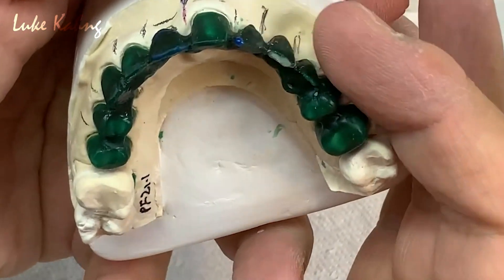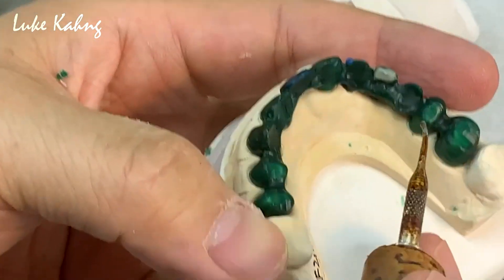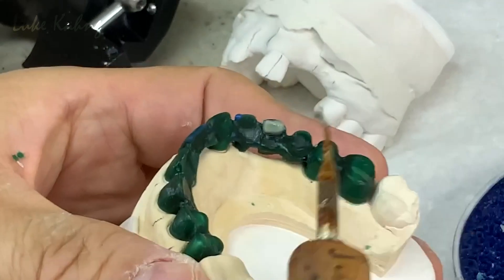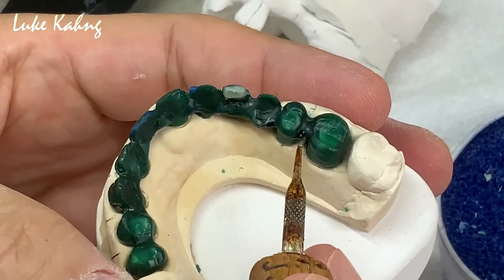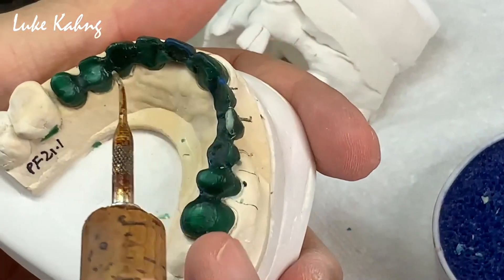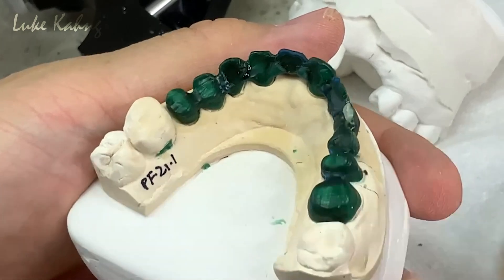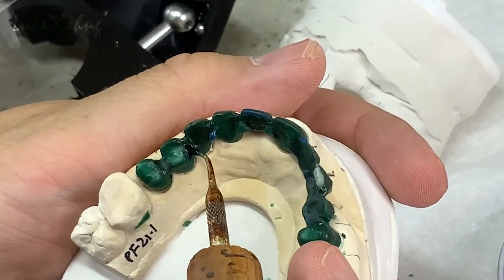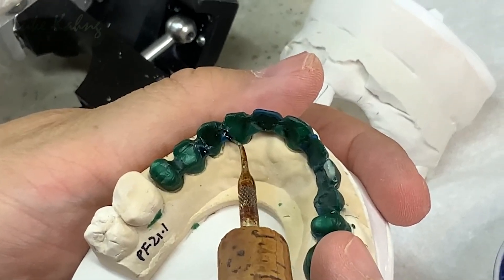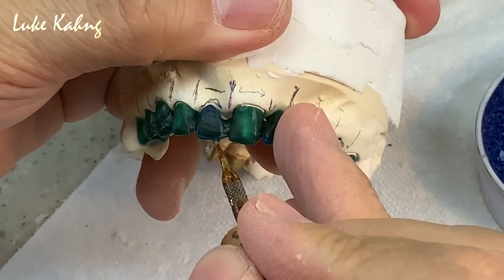Here is the facial bulk — this is good, open it. Everything has a little issue, so add here. We do not have any problem in this area for metal show — same here, no problem. Then here — all engaged together. My framework design is not cracking or rocking.